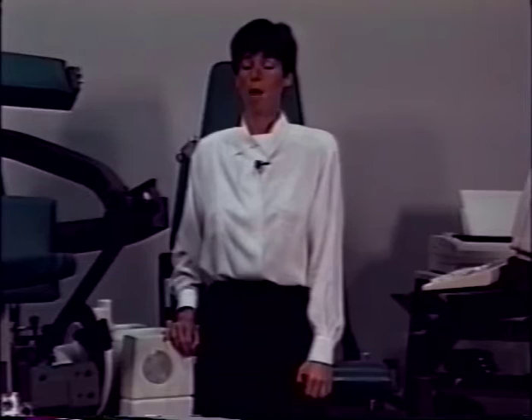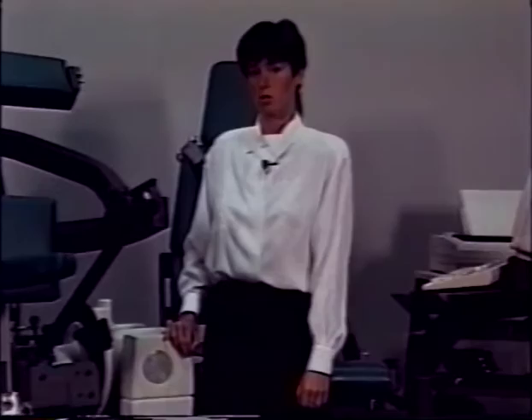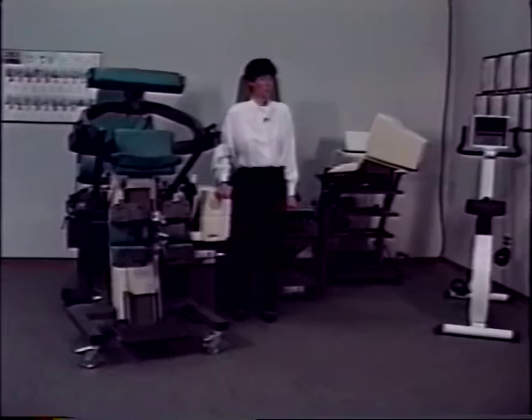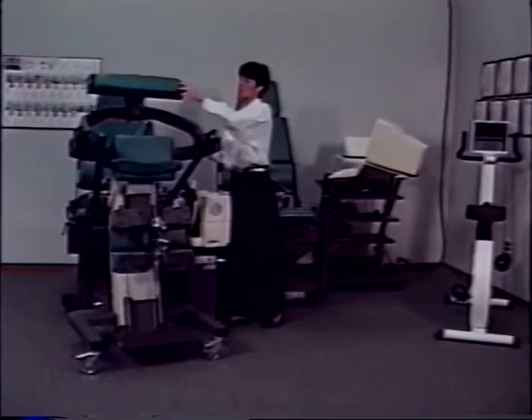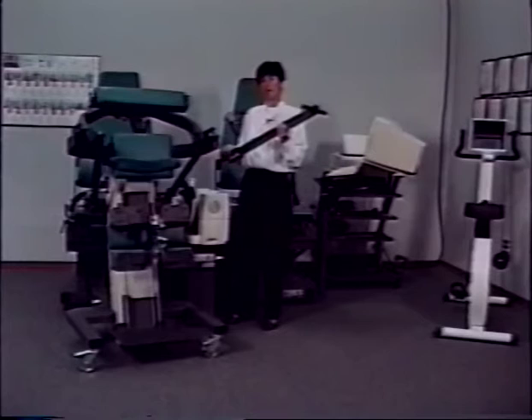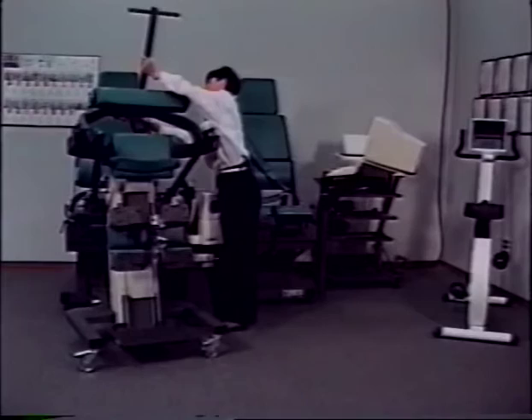The first step is to move the mechanical range of motion stop X to 9 and O to 62. When the stops are secured, press F12. Next, move the scapular pad down as far as possible and lock it in place. Then secure the calibration T-bar adjacent to the scapular pad adjustment. When the T-bar is secured, press F12.